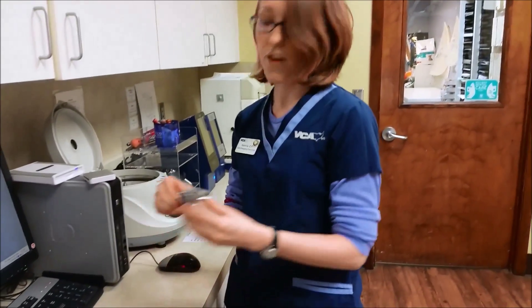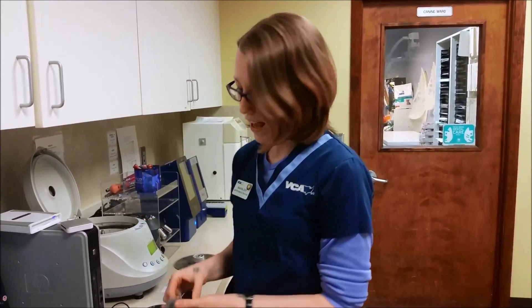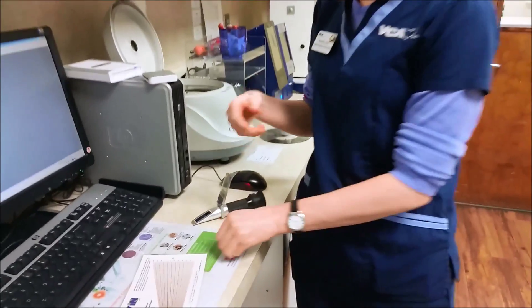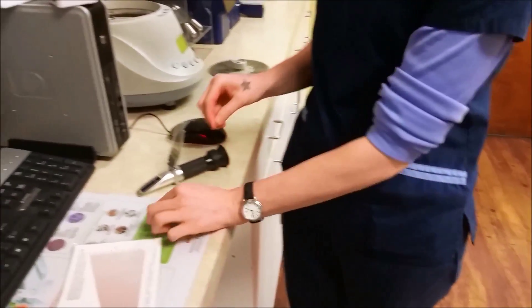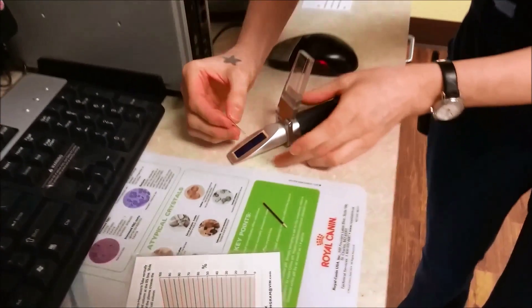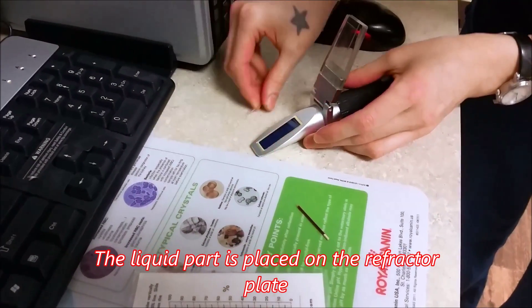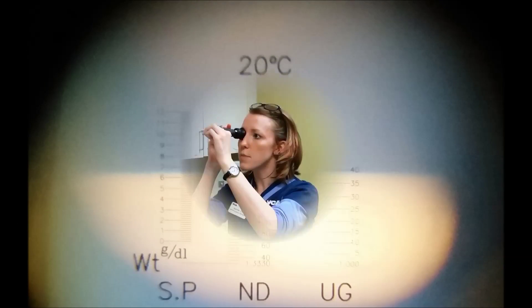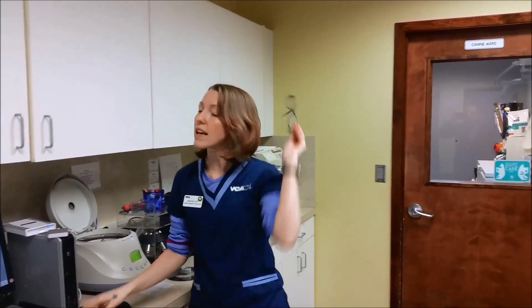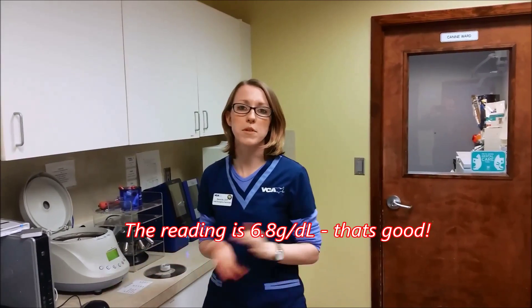So now I'm going to take our refractometer. This measures a solid in a liquid, and what we typically do is just break the hematocrit tube carefully. I'm going to take the smooth end and just tap a little bit of that plasma onto the window of the refractometer. Close that lid. The sample is about 6.8, so that tells us that the total protein or total solids of the sample is 6.8 grams per deciliter.